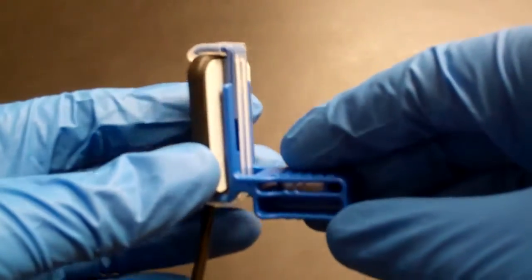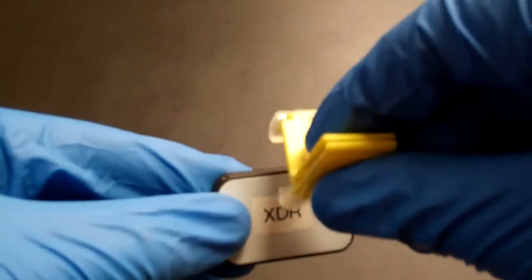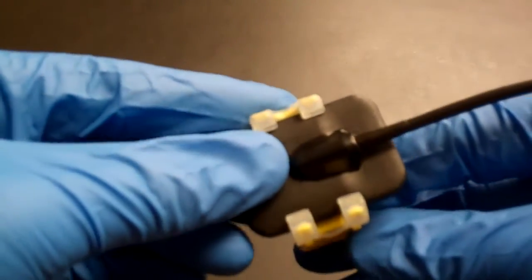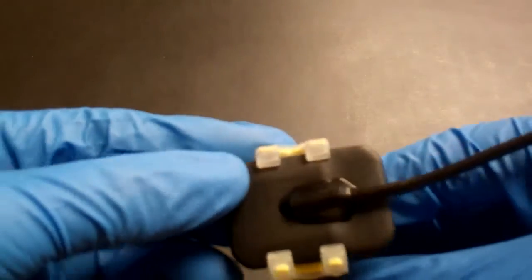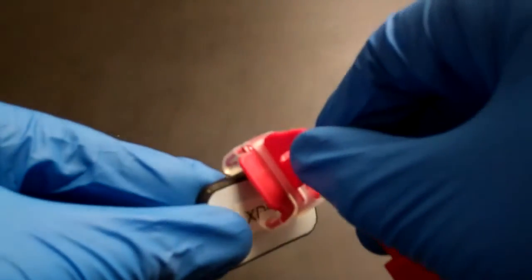Here you can see this is the anterior indication and the posterior is the yellow one. You can see how that clip stretches out to fit and hold it tightly. There's nothing that interferes with the cord attachment on the back of the sensor. There is one bite block per indication.